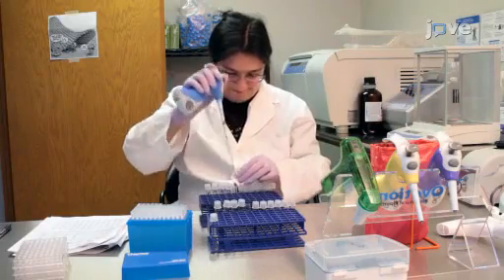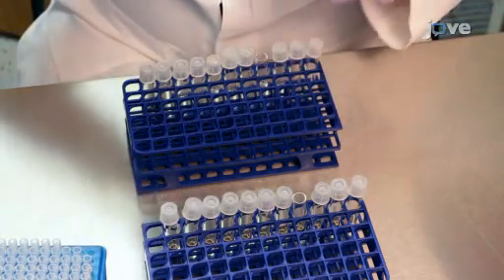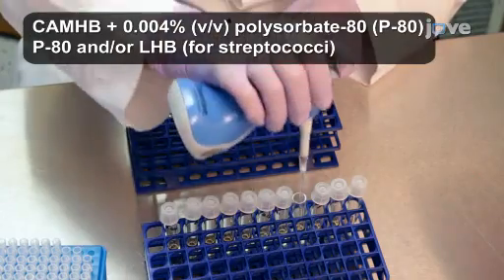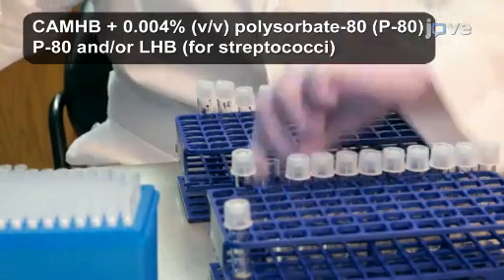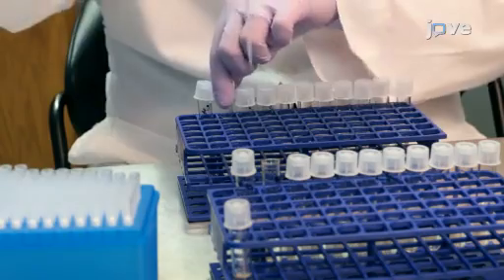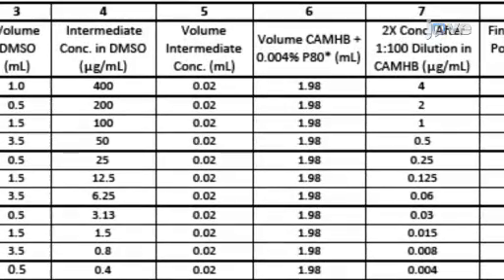Finally, dilute the intermediate concentrations by 1 to 100 in cation-adjusted Mueller-Hinton broth, also known as CAM-HB, supplemented with 0.004% P80. The resulting working concentration of dalbavancin and P80 is twice the final concentration, since the addition of inoculum will result in a 1-to-2 dilution.